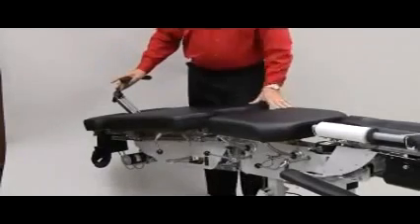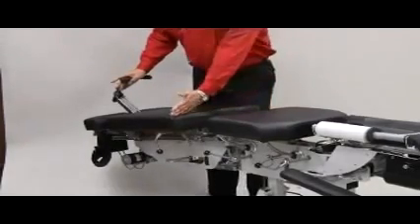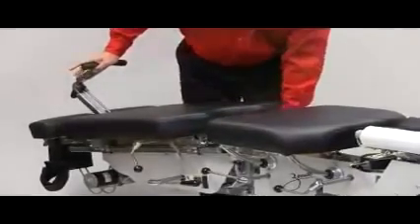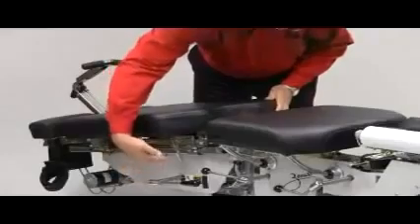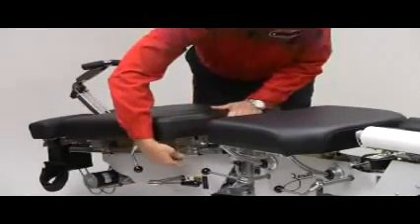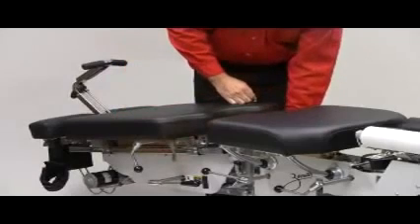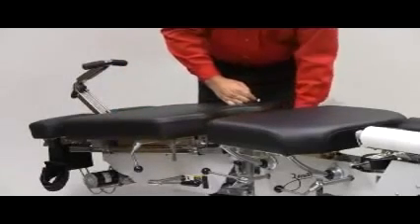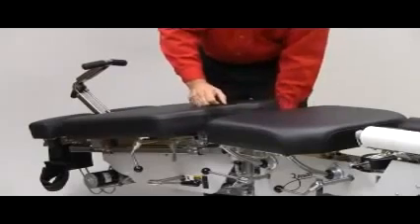This table today includes the pelvic drop at the cephalad edge, the front edge of the pelvic cushion. There's a cocking handle on either side. For actuating the drop, simply thrust. Tension control is running through the system to either side. This wand controls the strength plus or minus for the drop tension.